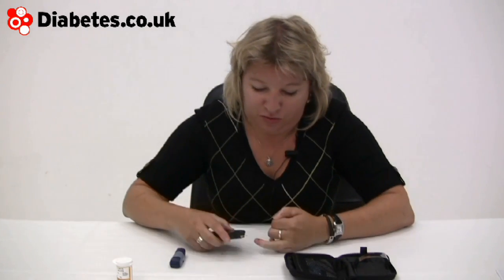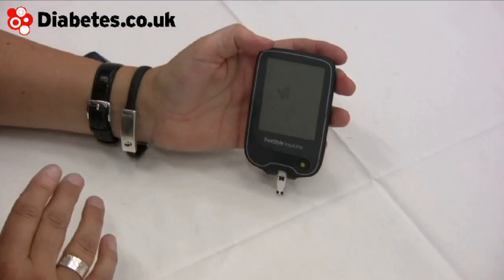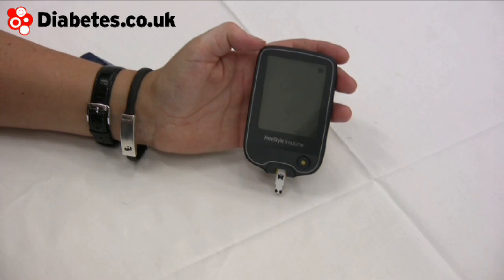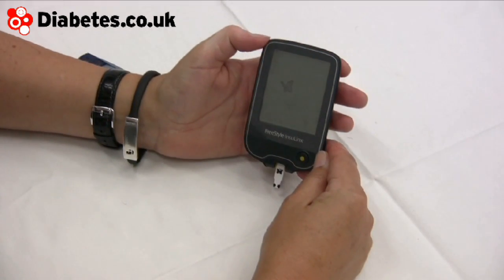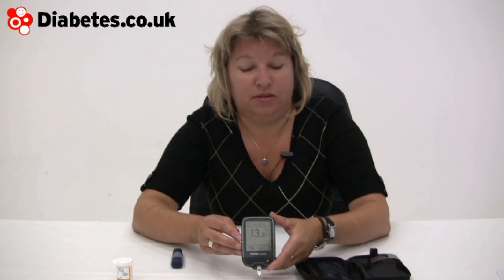And then the sucker punch about this machine. In that goes — a nice little butterfly flapping around, which is very nice. And a result. It is actually telling me that I've got a high glucose. So in case I wasn't aware of that, it is telling me.